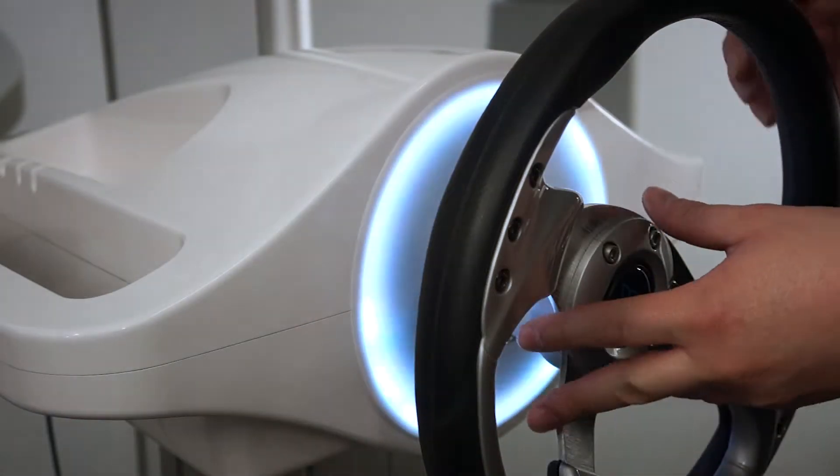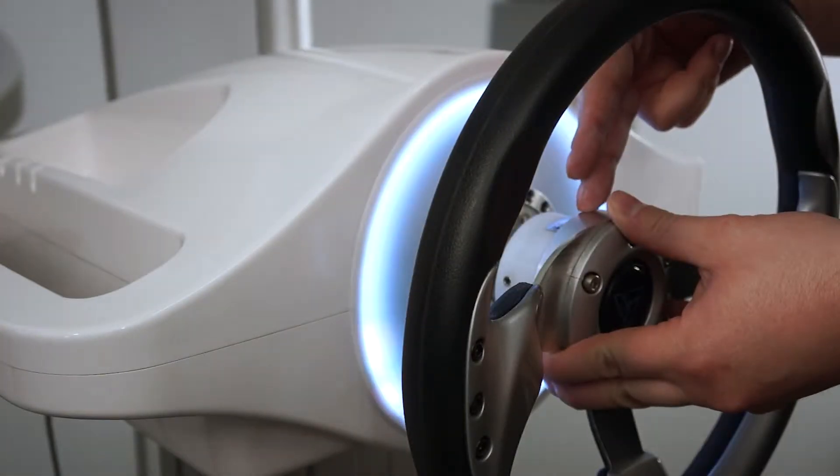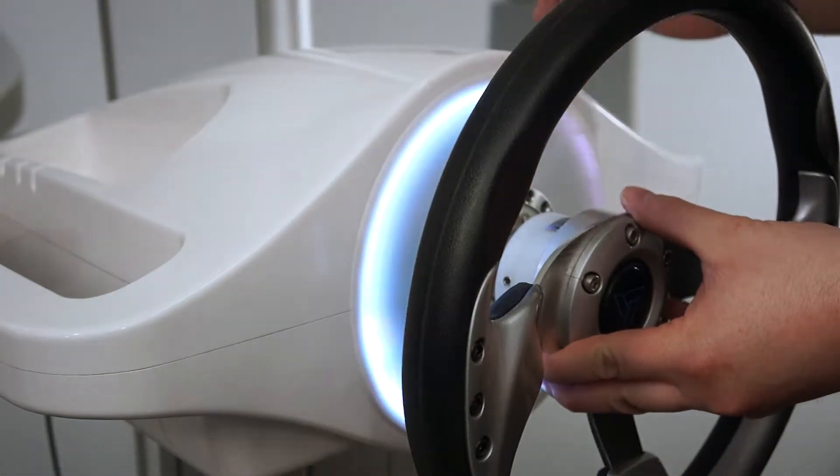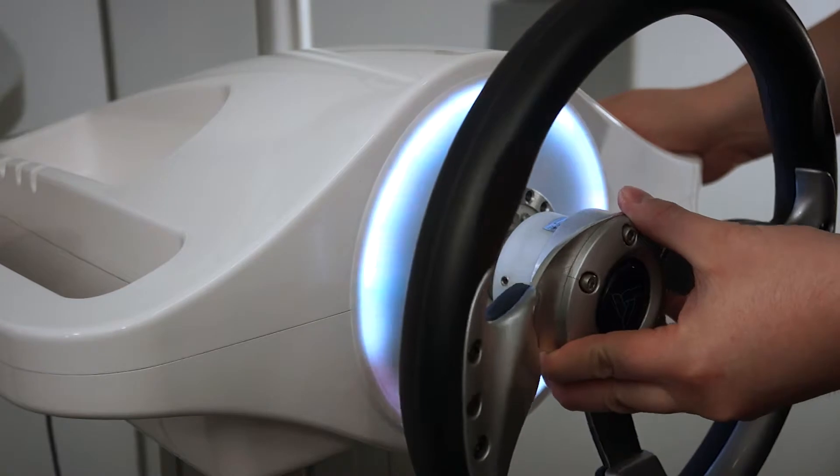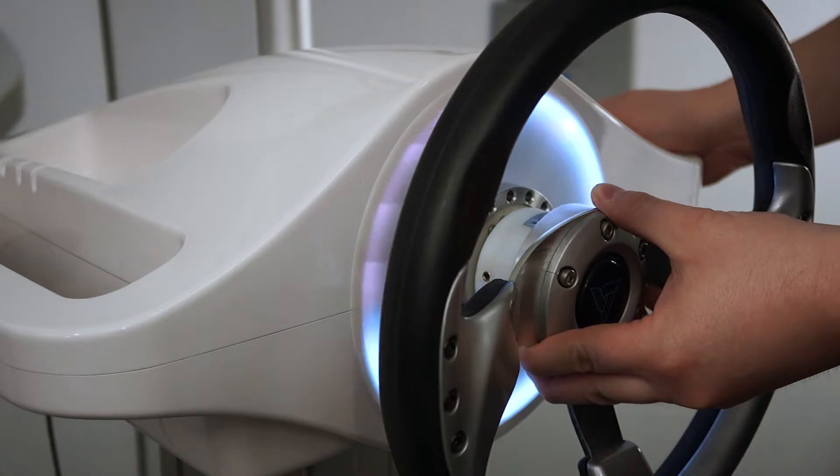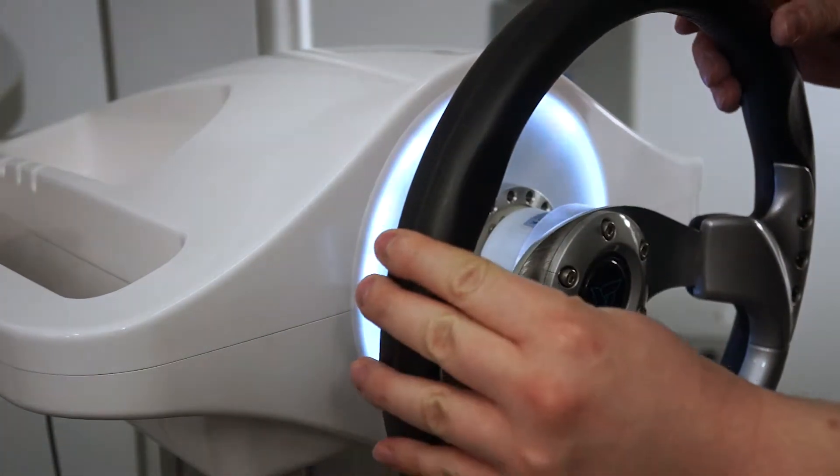The second step is aligning the extension in a top-right position so that the key inside the extension is aligned with the keyhole at the shaft of Luna. You can slowly rotate it left and right until you find a position where it'll slightly go in and you'll not be able to move the extension one way or the other.